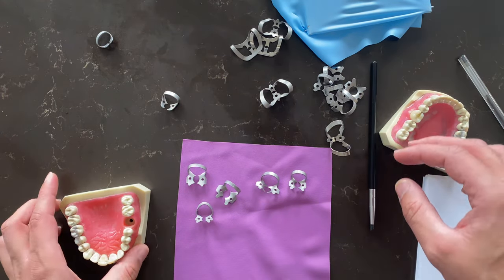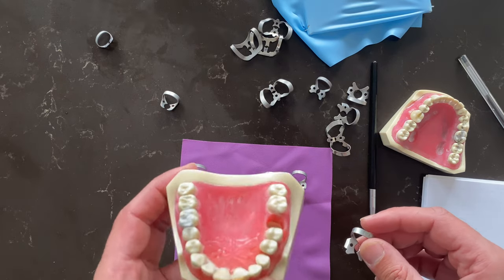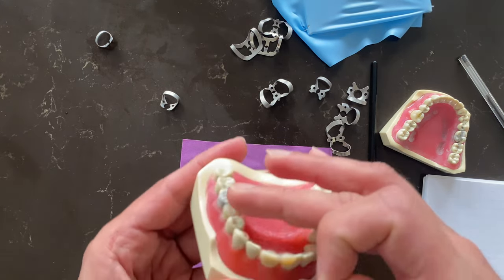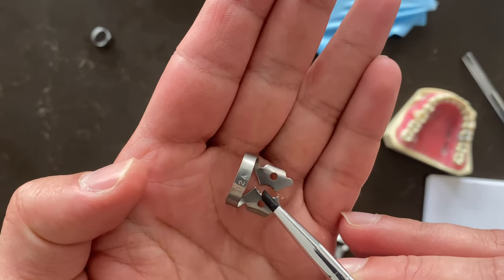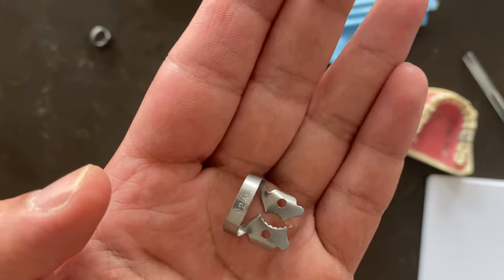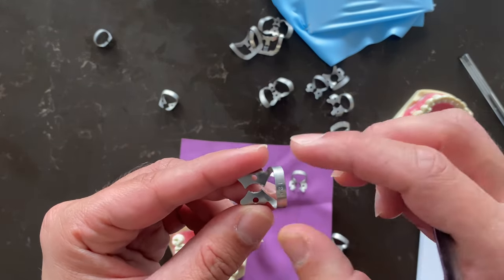There's one clamp called the 13A and 12A clamp. The reason they're called 12A or 13A is: if this is your first quadrant, the 12A goes on your first quadrant and 13A goes on the second quadrant. If you notice on these clamps, there's a big curvature on one side and small on the other side. This basically tells us which is for the upper clamp. Always remember — the big thing that you see always stays on the distal.